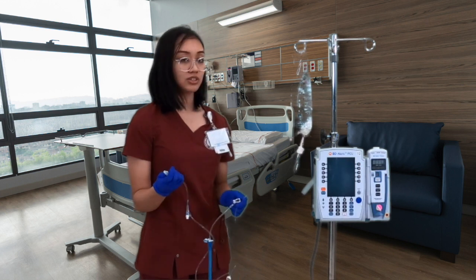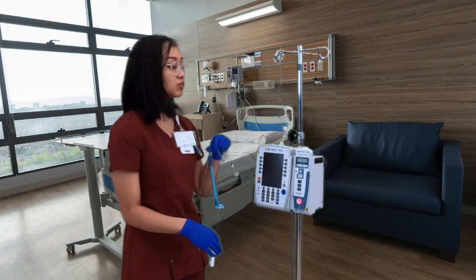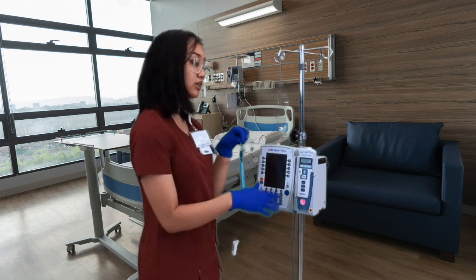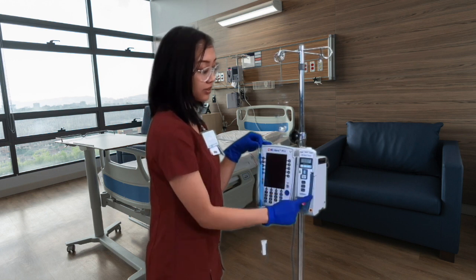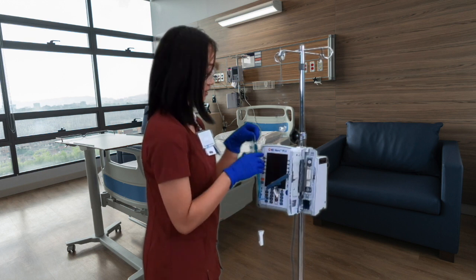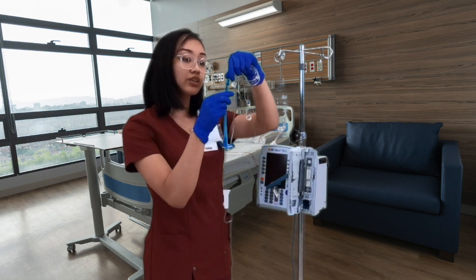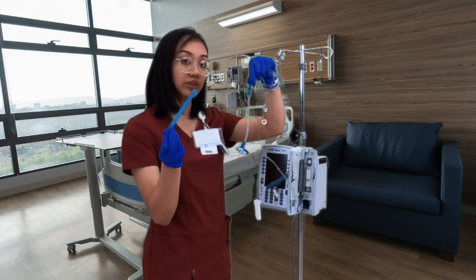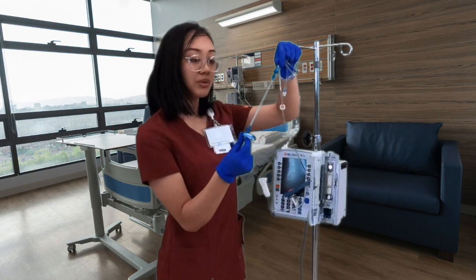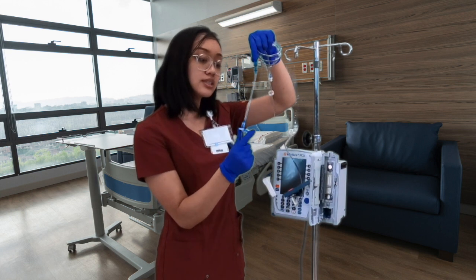Now that our line is primed, we're going to go back to the pump. The first thing I like to do is connect our line to the pump. To open it, there's a little leverage tab — pull it up and the door should open. When we get this line, there's a blue sheath on it; remove it since it's just a protective covering and discard it. There are two parts: a key portion and a little tab on top.